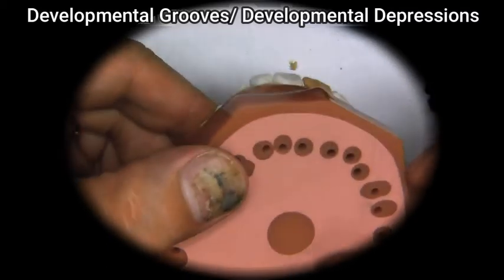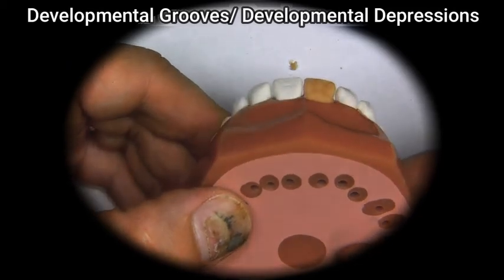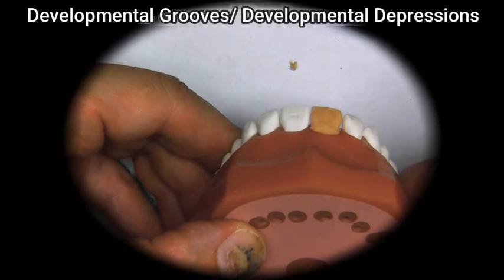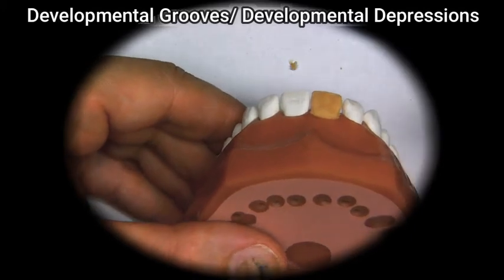and we look at it from here, it still looks about the same, but once we turn it, we still see a little difference, which means that we have to move up a little bit on the incisal edge and add a little bit more.